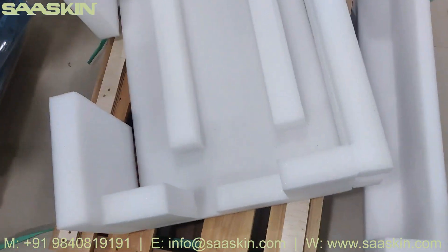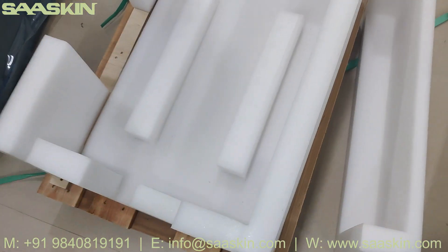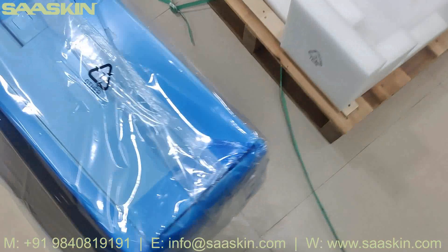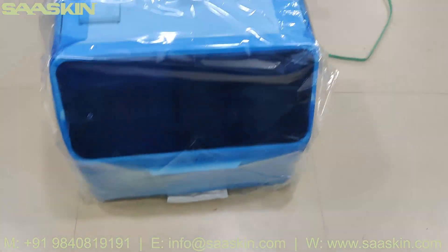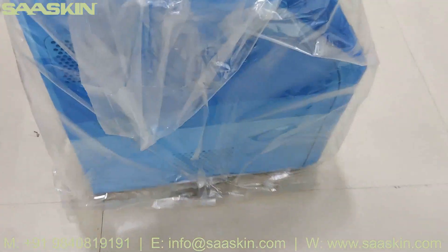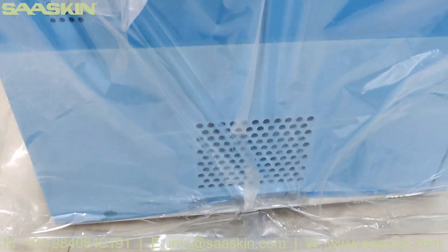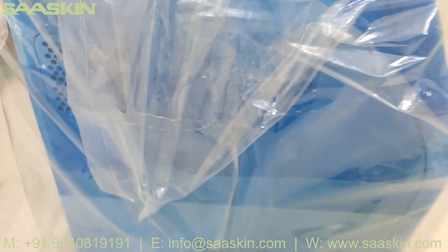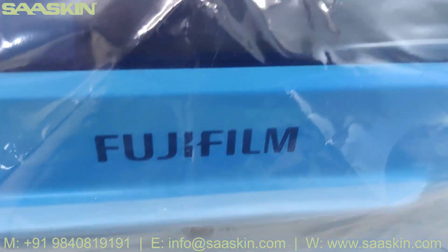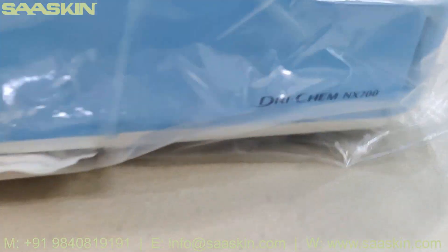Just opening the box for you. They have a very good base setup and it's completely packed this way. You can see the machine. Let's see if the seal is intact — you can see the seal.